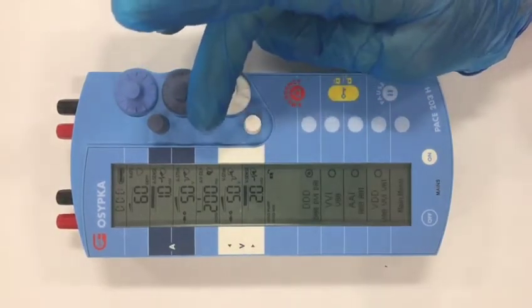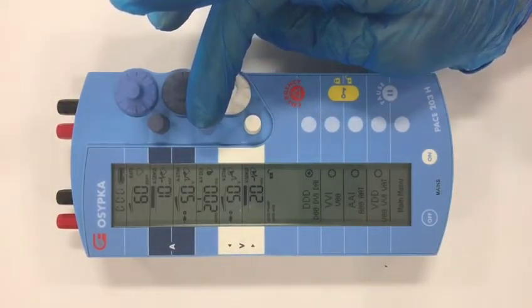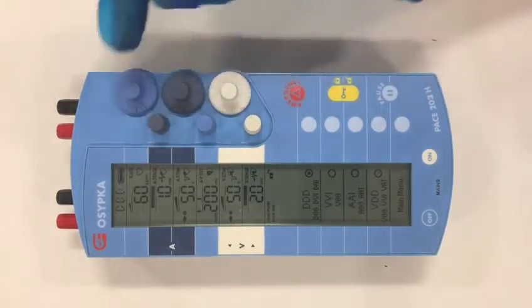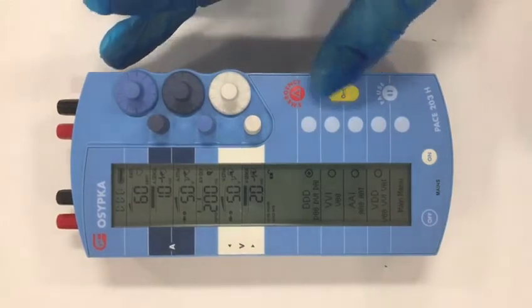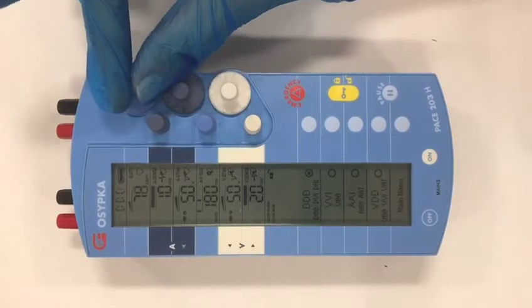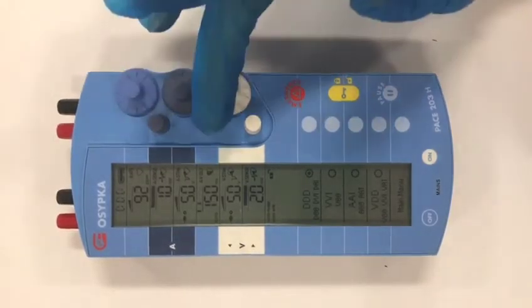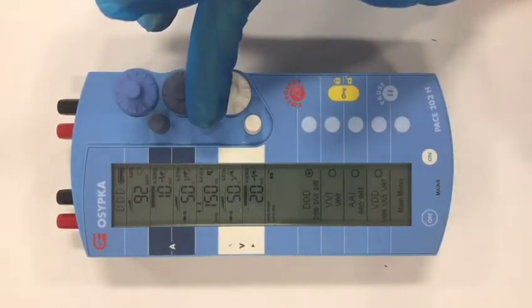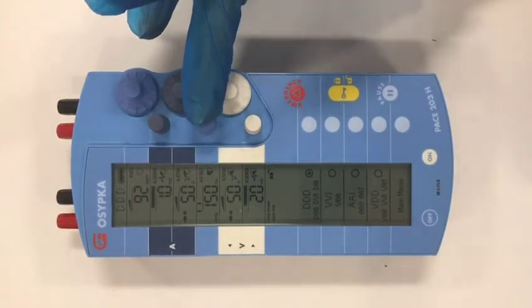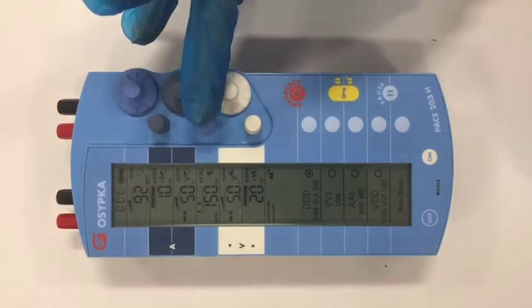The control in the middle is the AV delay — that's the time between an atrial pace being delivered and a ventricular pace being delivered, and this is tagged to the rate. So as the rate is increased, the AV delay decreases. When pacing at 90-something beats a minute, the AV delay is down at 150. This is the same as normal physiology: as your heart rate goes up, your PR interval or AV delay decreases.